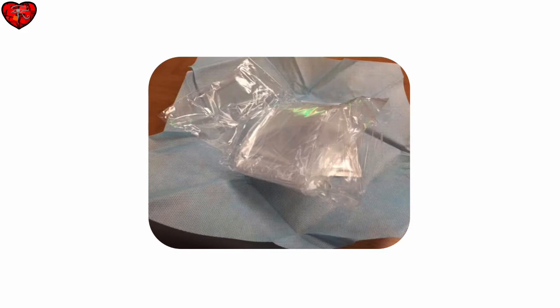This cover is folded up like an accordion to keep it compact. It opens up as you pull the cover onto the probe. As you approach the cover, identify the open and closed end.